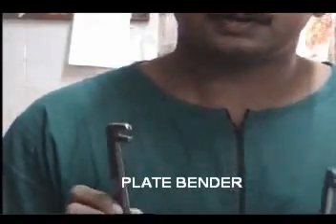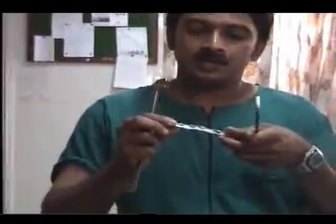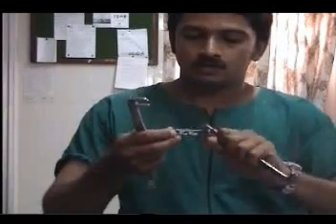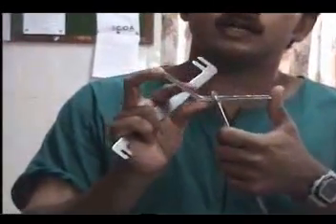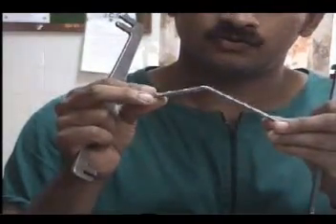This instrument is called the plate bender. No bone in the human body is straight — even long bones have a significant amount of curve on them. To fix the bone onto the plate, you may have to bend the plate using the plate bender. You assess how much bending is required on the bone and then hold the plate with the bender and bend it. This is commonly used in Perthes' disease where you have to create an angle of approximately 120 degrees for the plate, and can also be used to create small curves to match the bone's contour.